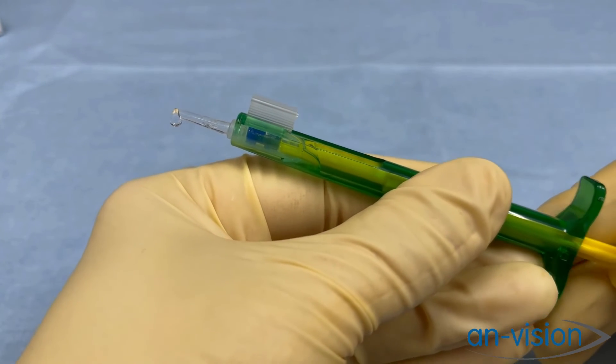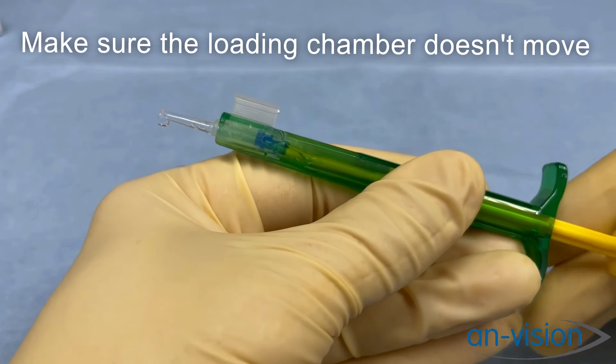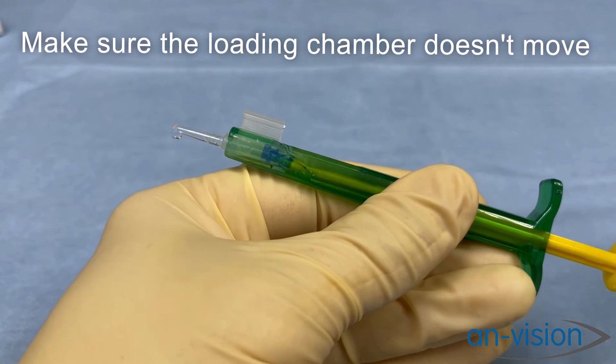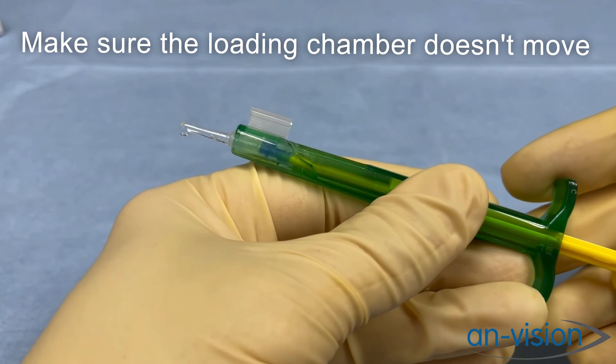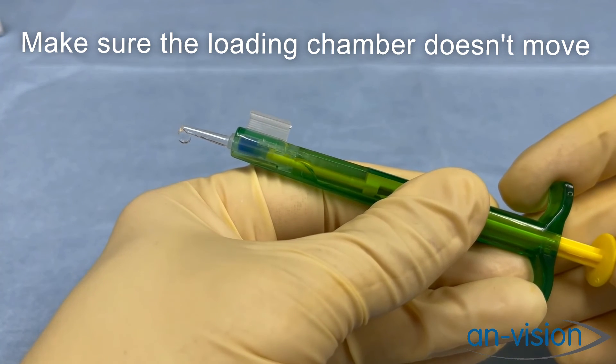At this point, if we pull back that plunger just a little bit, it will release any haptics that might be trapped, preventing any complications as it goes into the eye.